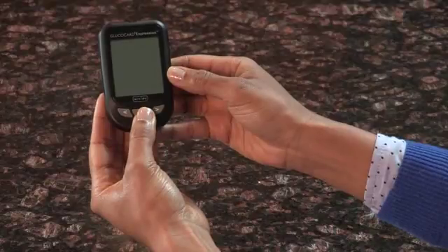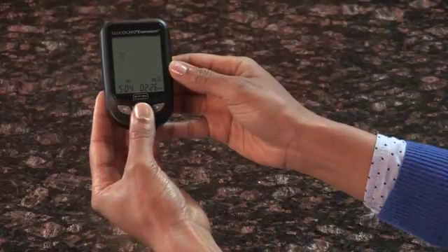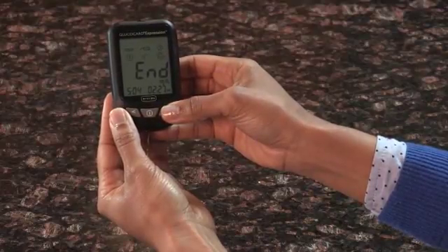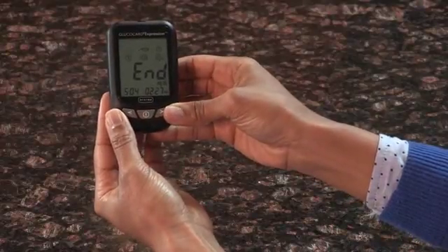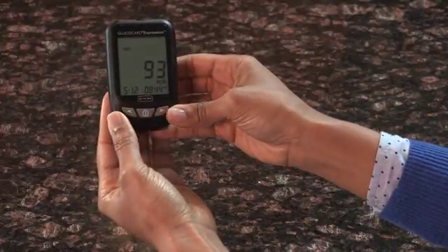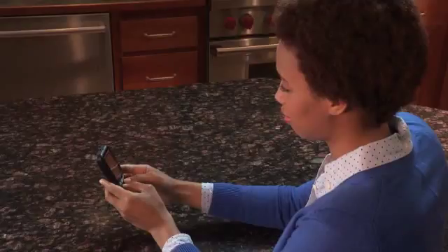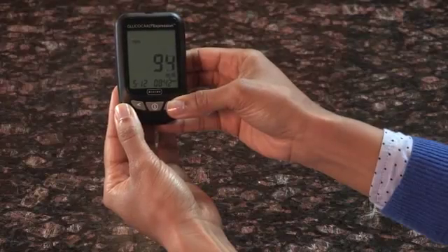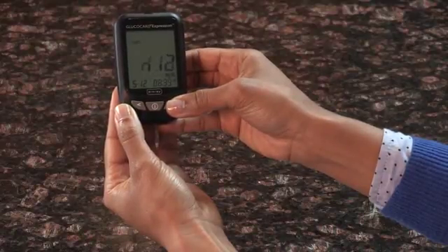Press and hold the Enter button to turn the meter on. Press the Enter button again to enter the Setup screen. From here, press either the left or right arrow until the MEM icon is highlighted and begins to flash. If the voice function is turned on, the meter will say Memory Recall. Press Enter to confirm. MEM will appear at the upper left corner of the display screen together with your most recent test result. Press the right arrow to see the next result, and the next, and so on. Holding the right arrow will scroll through the test results.